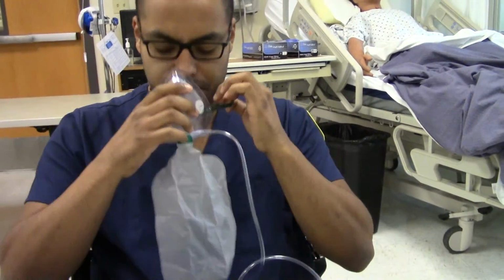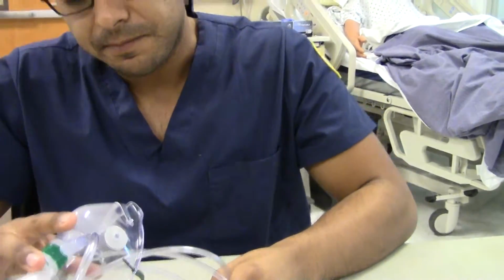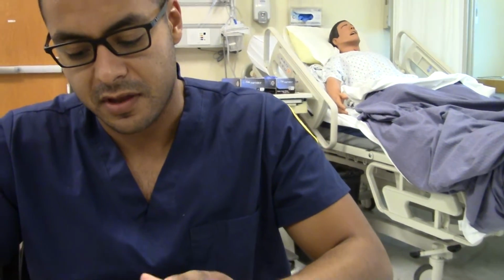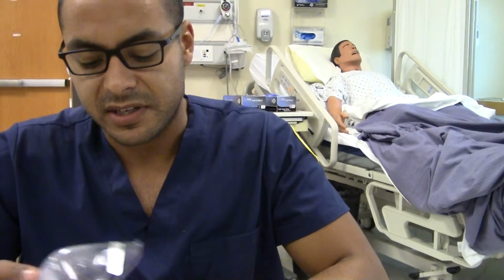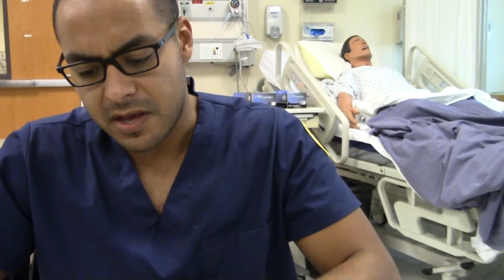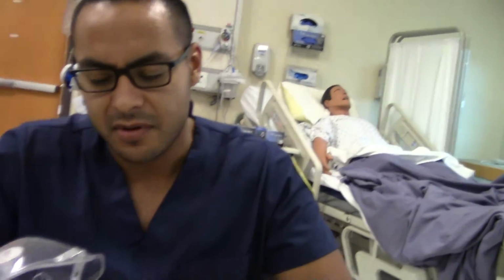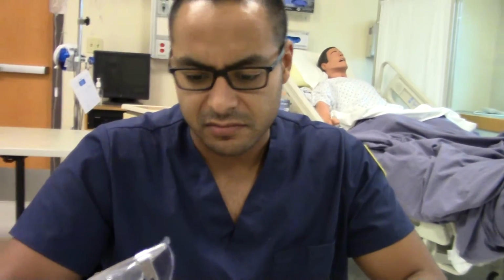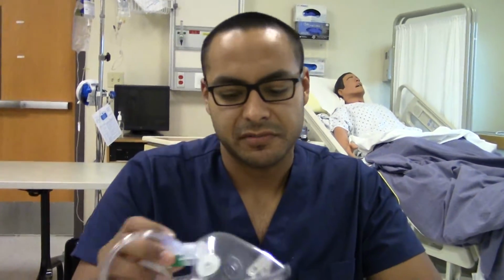So yeah, it's used on adults, children and infants, with small ones for babies. It's inexpensive and disposable. The disadvantages are the same as the simple mask. If patients are eating, they have to take it off. And this could be a suffocation hazard, and it also captures a lot of heat, so it could be fogged up. This is used for emergency situations usually. You only need it for short-term therapy, so short-term therapy of higher oxygen than the simple mask and the nasal cannula. Short-term use.